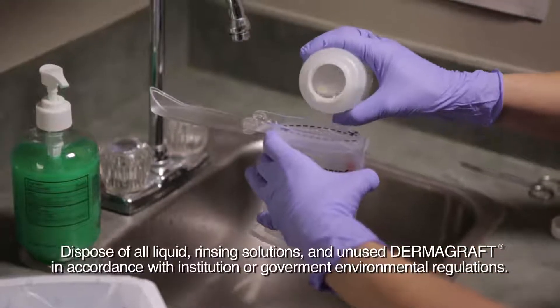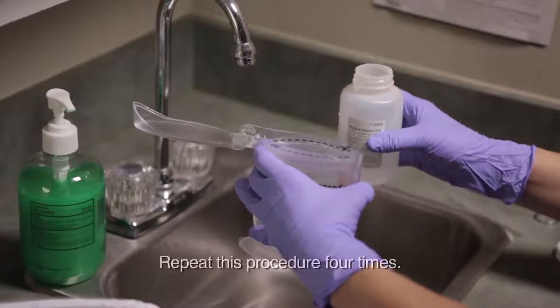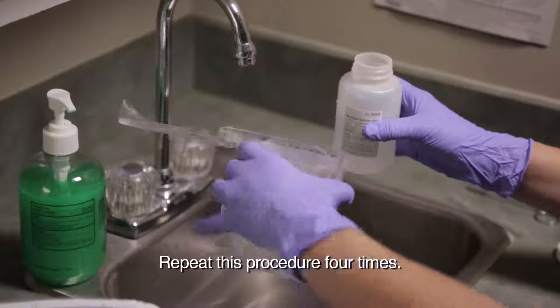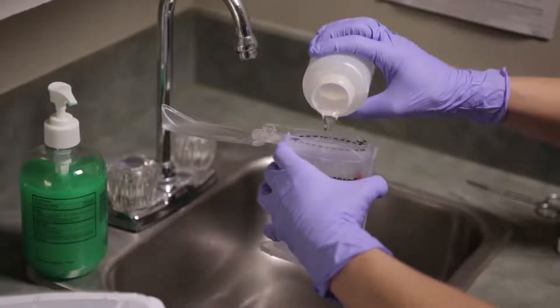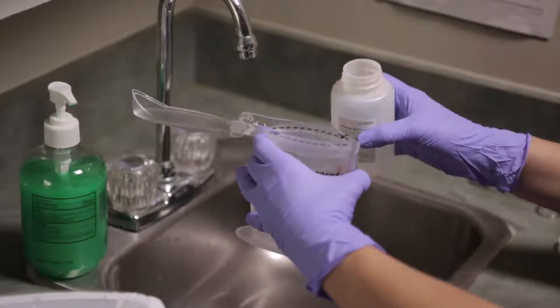Fill the pouch to the dotted line. Count to five. Then pour out the saline. Repeat this procedure four times. On the fourth rinse, the product is ready for application or if more time is needed, Dermagraft can be held in normal saline for up to 30 minutes prior to application.